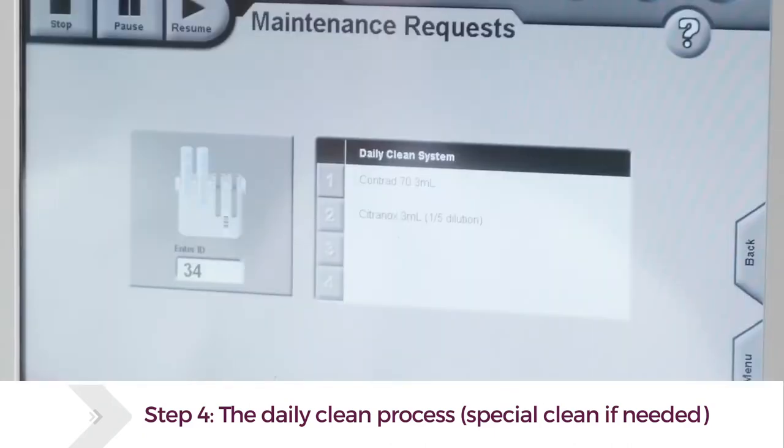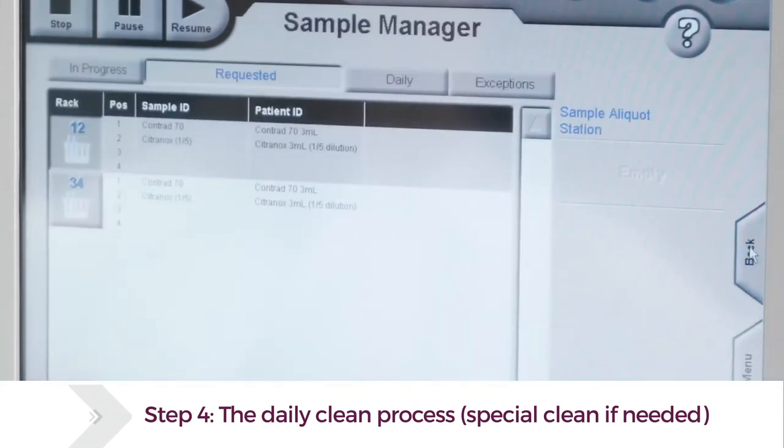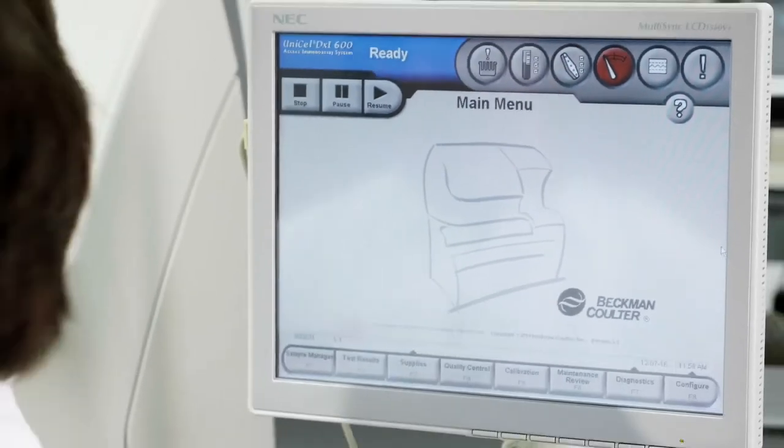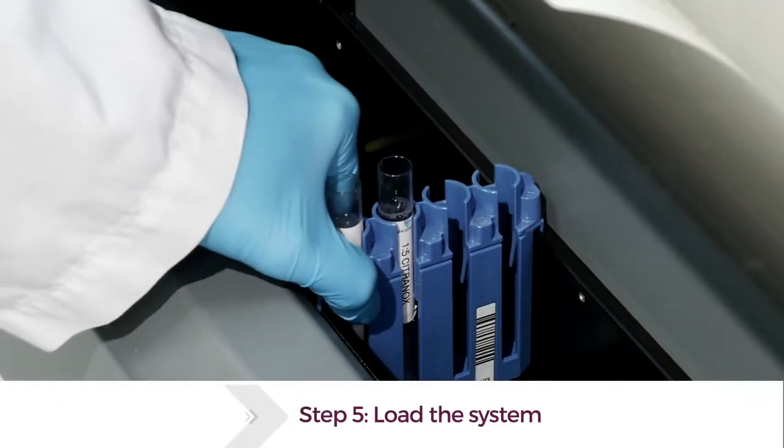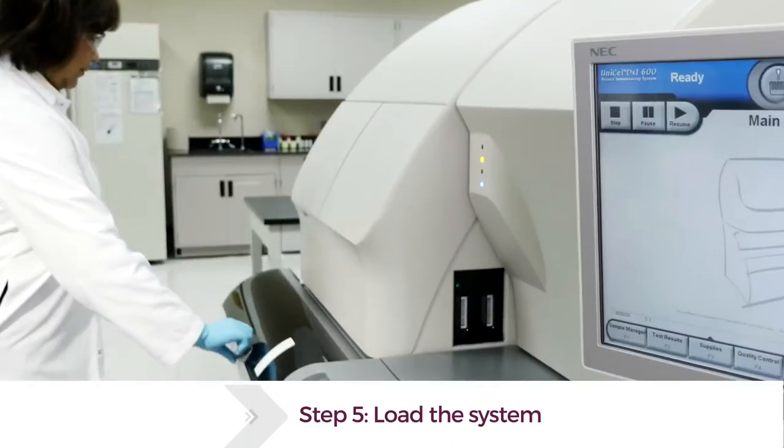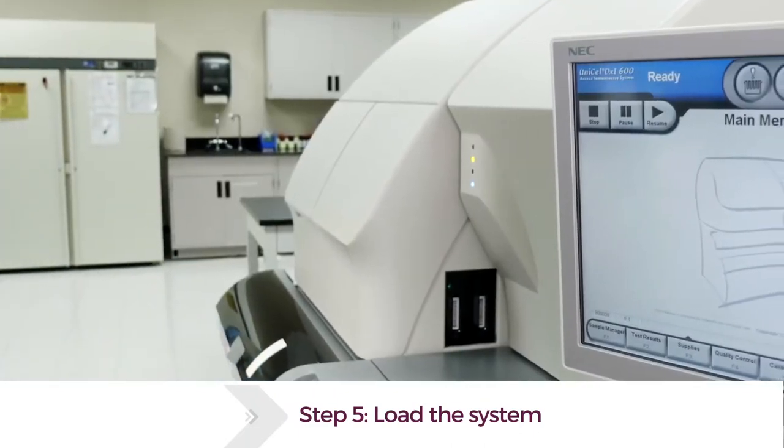With only a few easy commands, operators are quickly guided through the remaining steps regarding which consumables and the respective quantities are required. To conclude the daily clean procedure, users just load the system and close the cover. The automated analyzer completes the process.